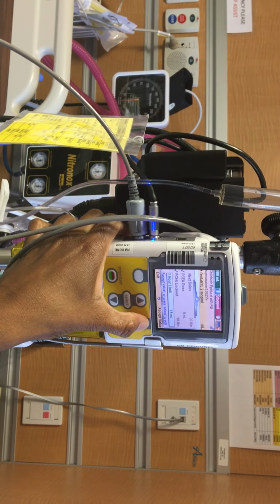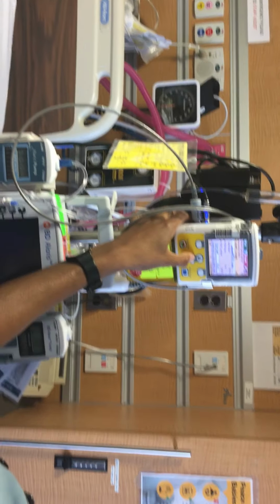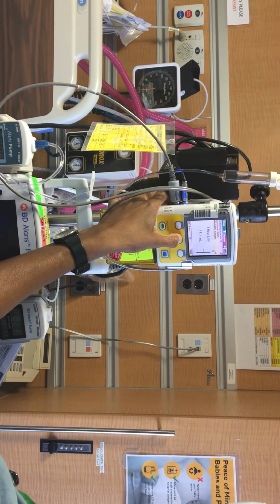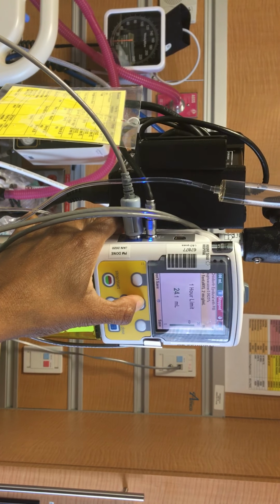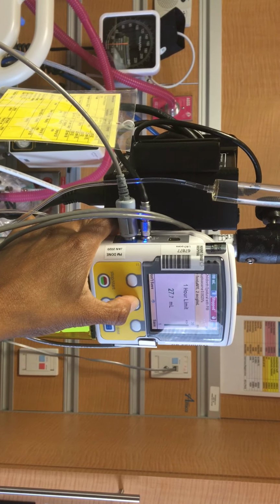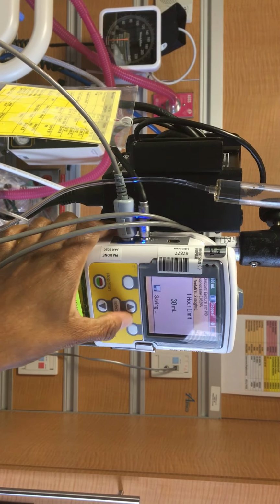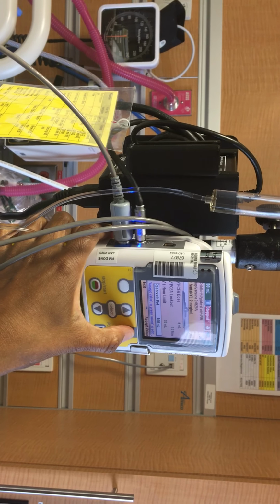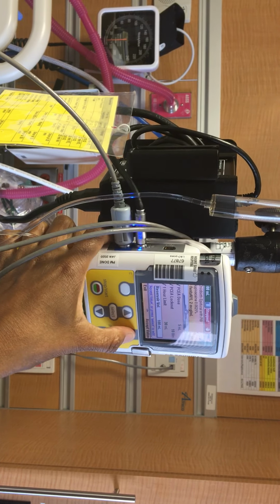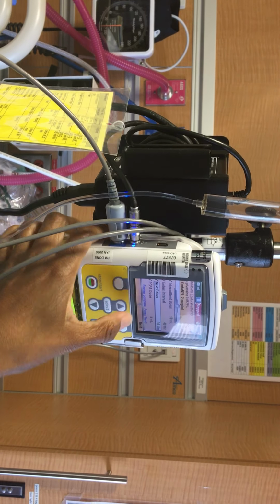The 1 hour limit is usually, I think, is it 30? 30. Usually 30 mils, so you would change that to 30. So, you just go by whatever the protocols are in your particular hospital. We're just giving you an example of how it works here. And then you hit save. And then once you put all your values in, you're just going to accept all of the values. The reservoir volume is usually 100 mils, so yes, I'll accept. And then it's going to put check marks next to each one.